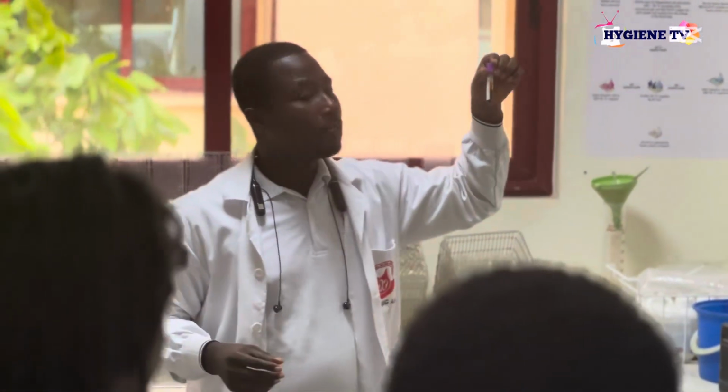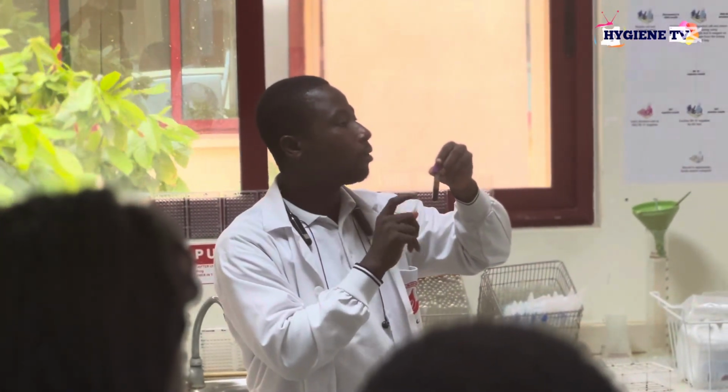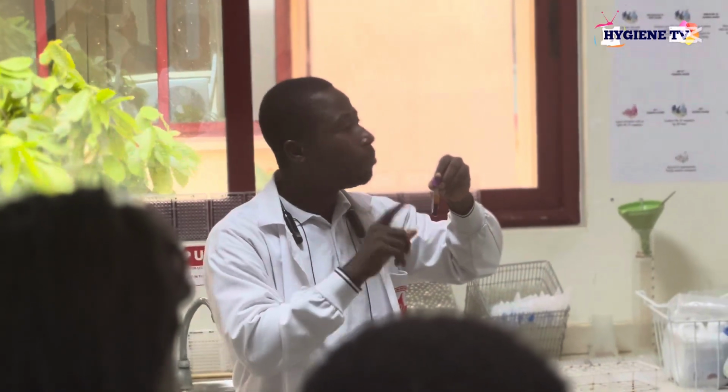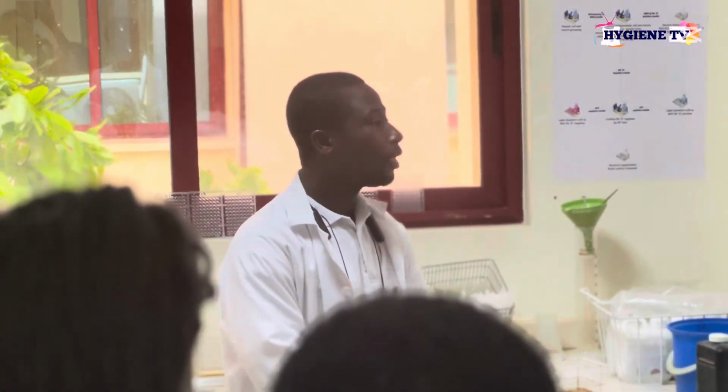But this plasma looks a little bit deeper than this one. So this should prompt you that there is some hemolysis occurring in this particular unit, so it may not be safe to transfuse. That's the first observation you can make. Aside from that, if the blood stays out of the fridge beyond the temperature requirement, whether the plasma is clear or not, it is not safe.